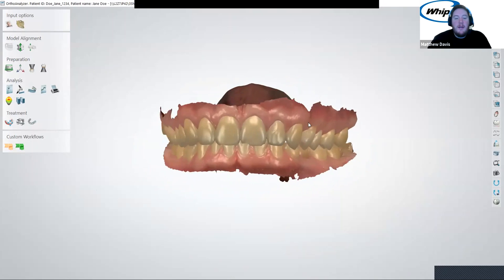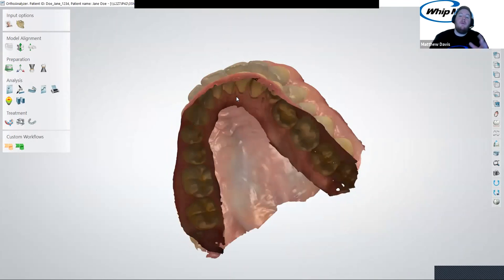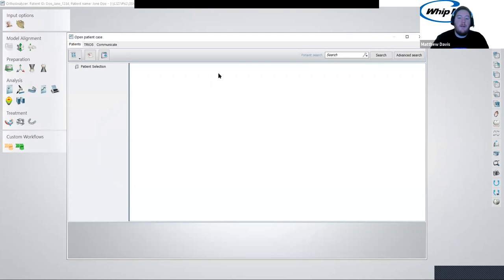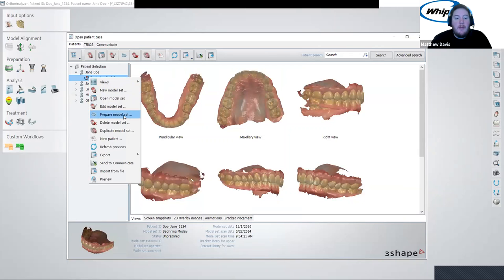This is what I call the landing page for your patient. It has a lot of options and features built in. What we want to focus on is getting these wafer-thin scans — I call them shells — and putting them with a base: solidifying them and making them ready to print. 90% of the time, that's what you're going to be looking to do with these models, and that's what Ortho Analyzer is built to do. We're going to find our patient that we just made. You can see this red exclamation mark — it indicates these models are imported but have not been prepared in any way; they are just raw scans.